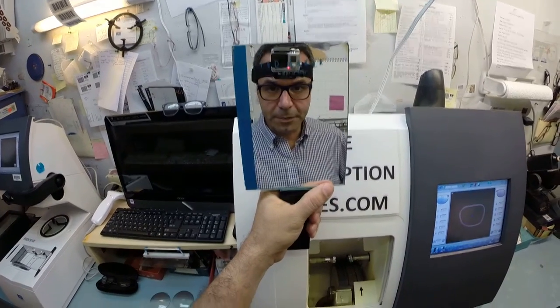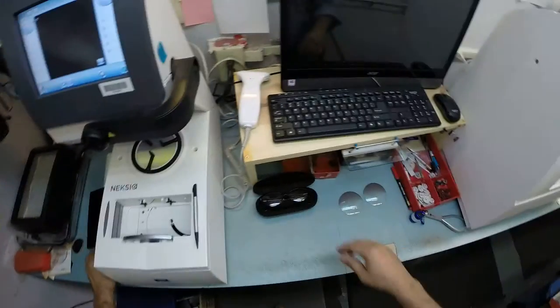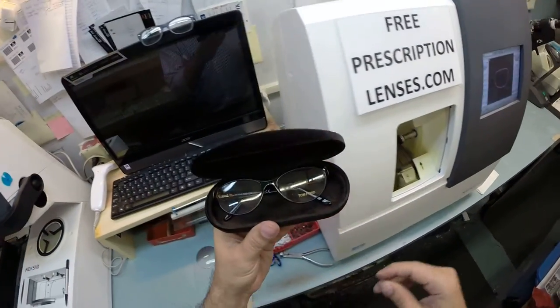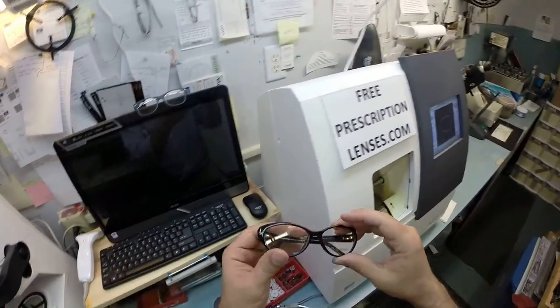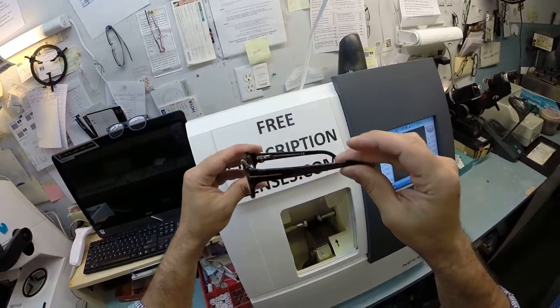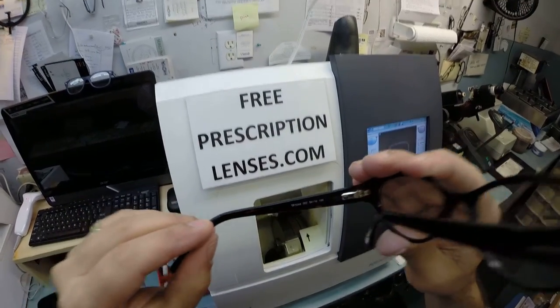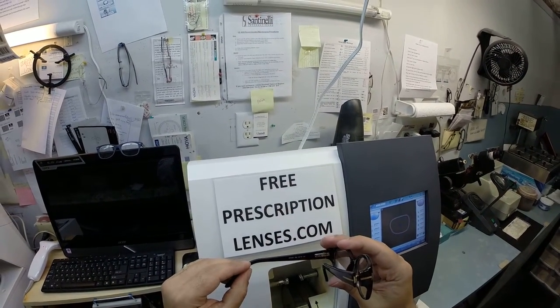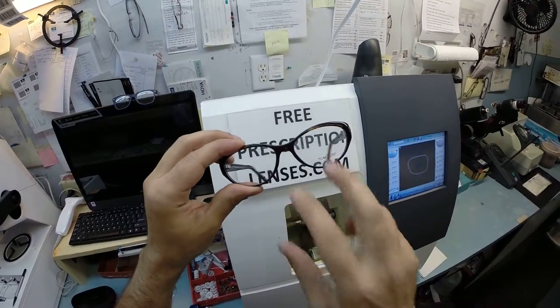Hello Victoria in Jacksonville, Florida. Matthew here with freeprescriptionlenses.com. With the help of my GoPro camera, I'm going to show you how I cut a bifocal lens: non-prescription in the top and a 1.75 reading in the bottom for your Tom Ford 5244, color 052, size 54.